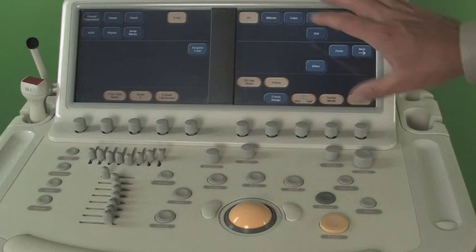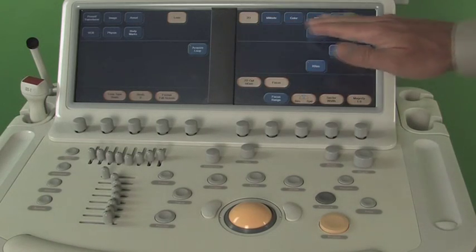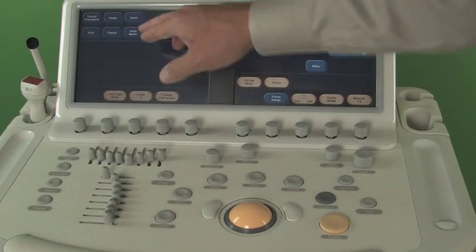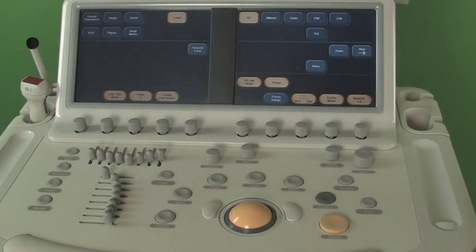The touch screens are very nice because they're laid out with your basic modes on the right and supporting things on the left, like loop, annotate, physio to adjust your ECG, and so forth.